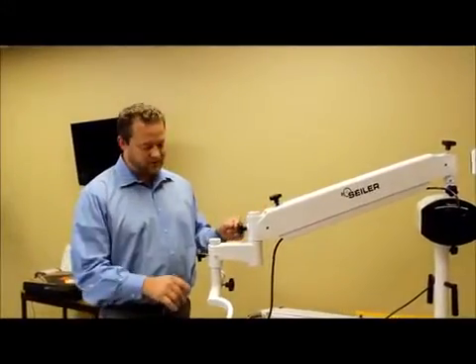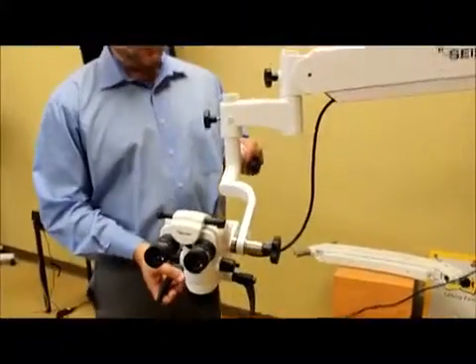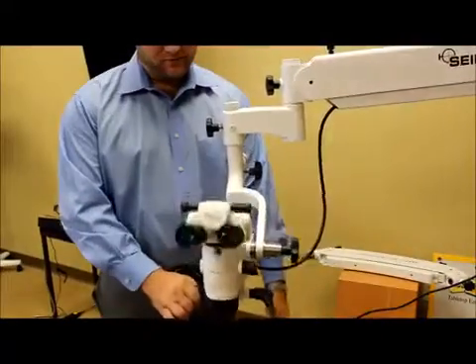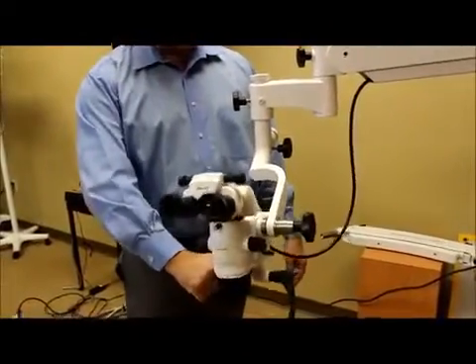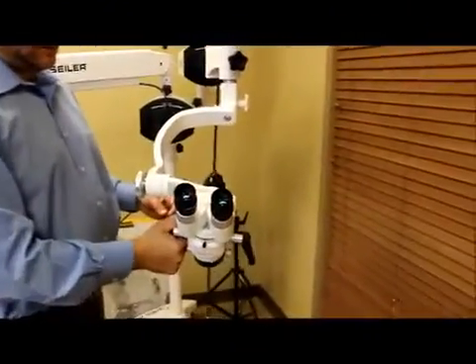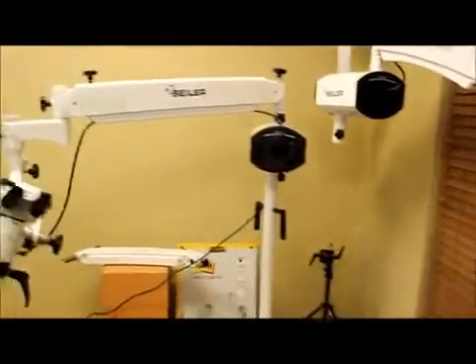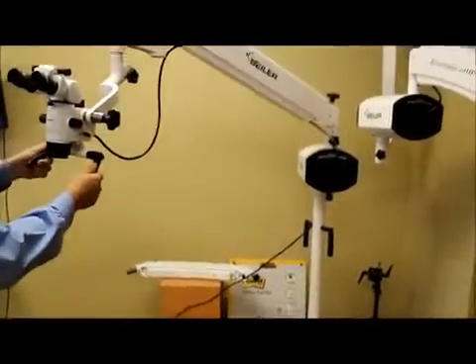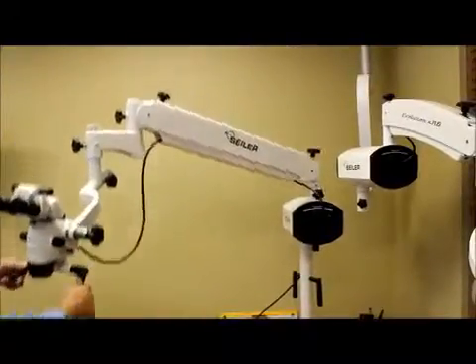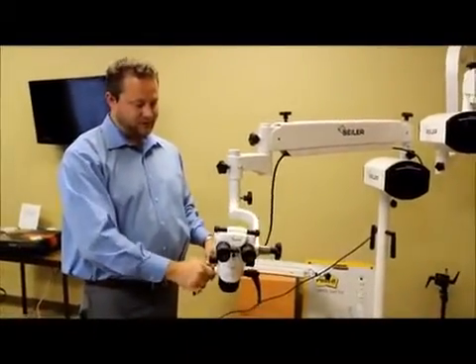The other change that we did was to the actual angle arm system to do the movement of north and south. As you can see, it's an absolute beautiful, flawless movement now. Compared to where we had before this change, where you had a little jump movement — still nice, but not as optimal as the new angle arm. So again, the new panographic arm is about 36 inches, and the new angle arm system has beautiful north to south and east to west movement.